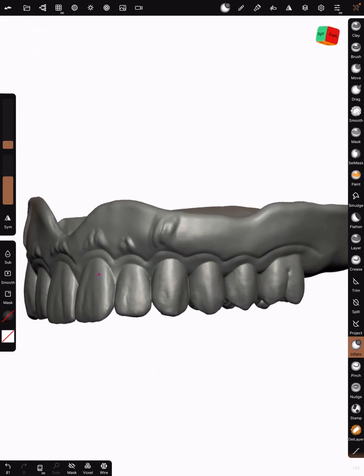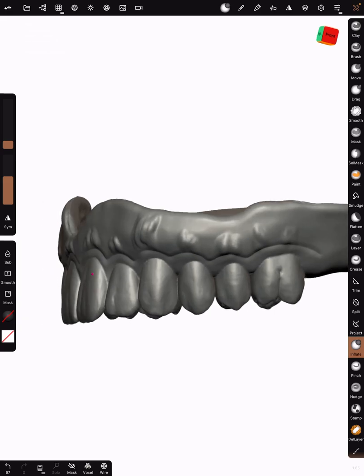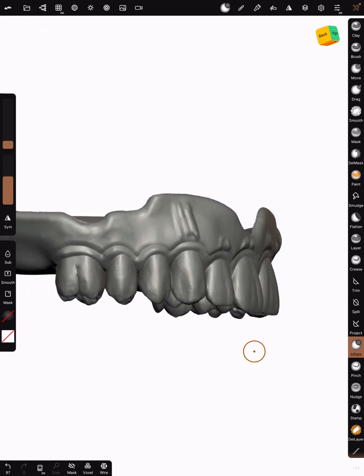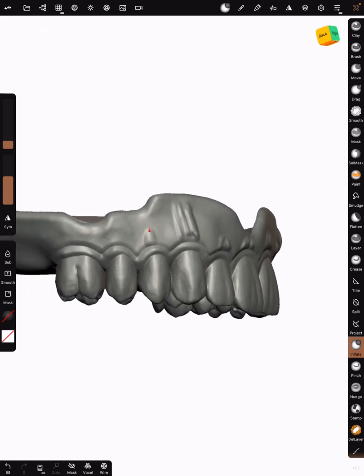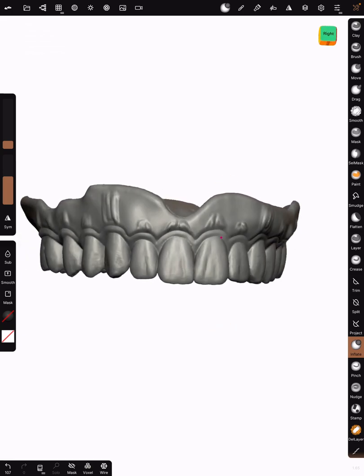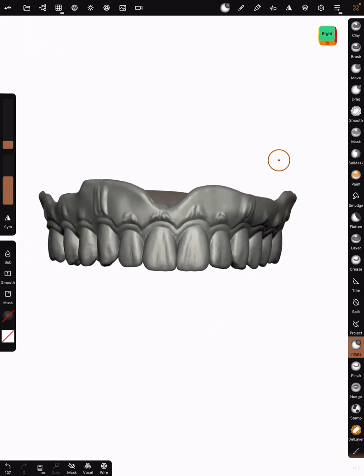You can go ahead on your posteriors if you want and add a little bump. This is just how I do it. I bet there's people that are way better at this than me. I'm just showing you what I do. Once you have those positives, we're going to add negatives.